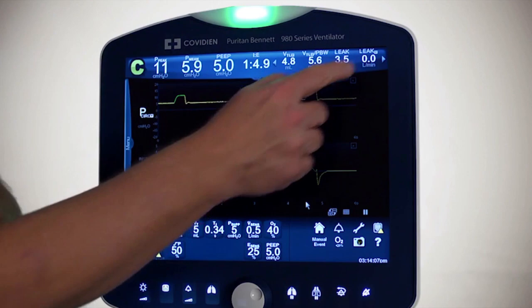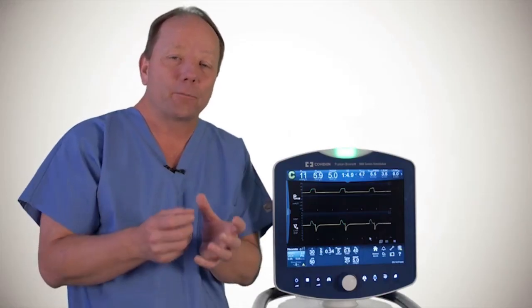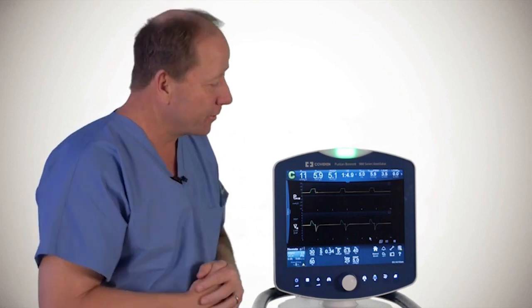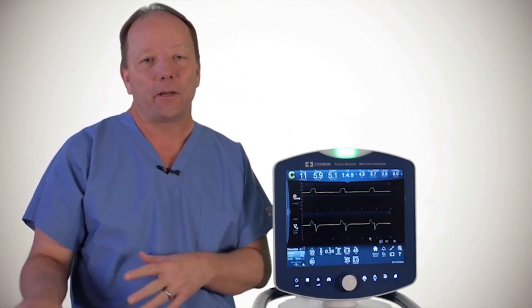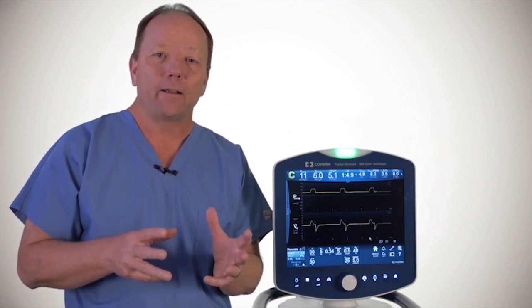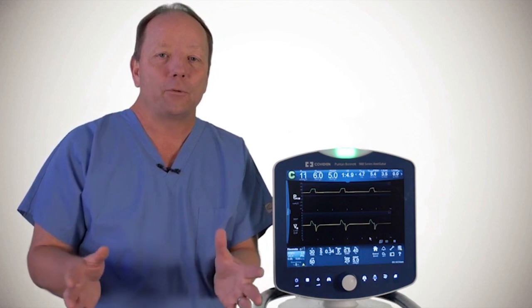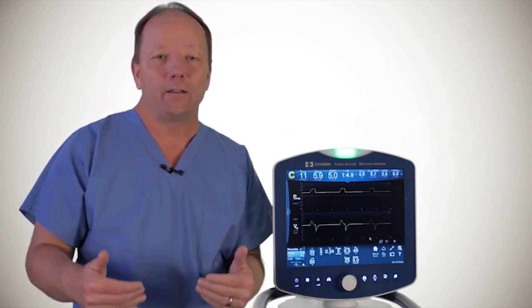The next value to the right is called Leak Y. Because the ProxFlow is all the way up at the patient Y, it can only detect leaks after that point or in the patient. In this scenario, I created a leak in the circuit but not in the patient with my test lung. So comparing Leak versus Leak Y, if you see a disparity between these numbers of significant value, you might consider whether you have a leak in your circuit.